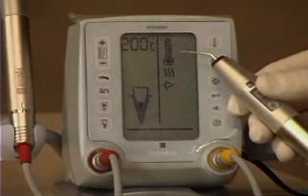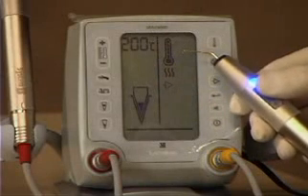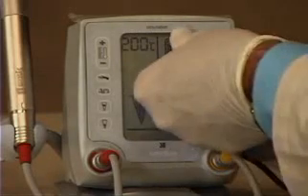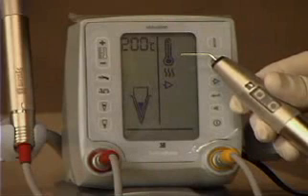Before we place the needle into the canal for backfilling, we want to do what's called priming the needle. We run the motor until a little bit of gutta percha comes out the end, wipe it off, and we know that we have gutta percha right to the tip of the needle.